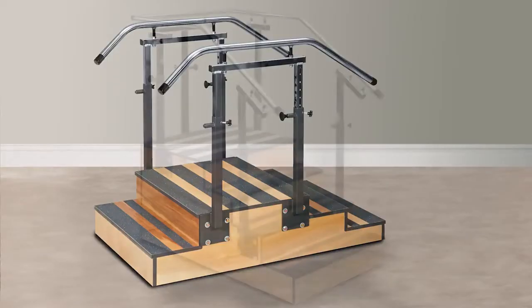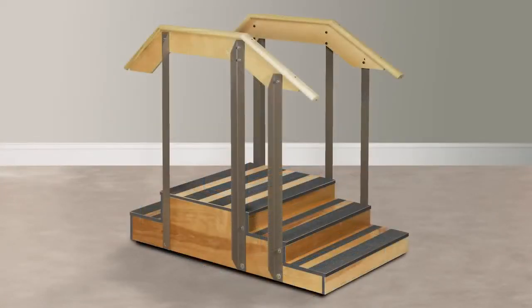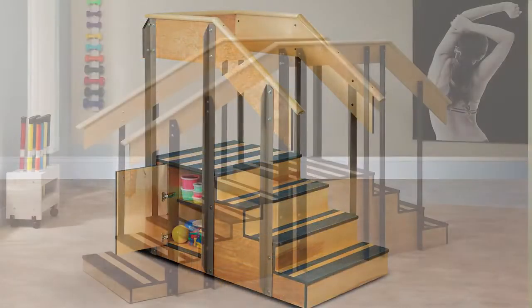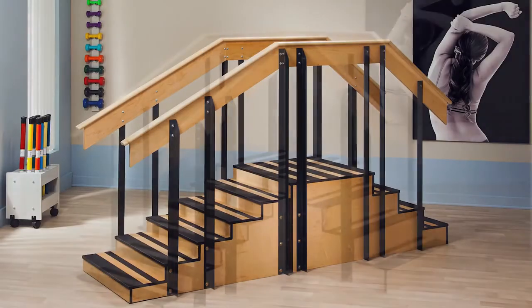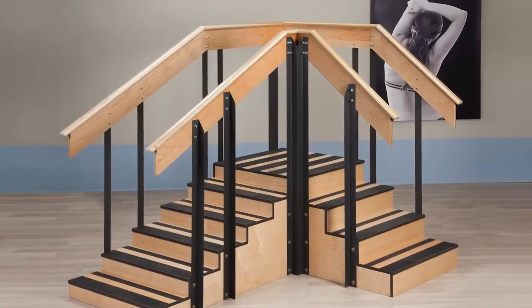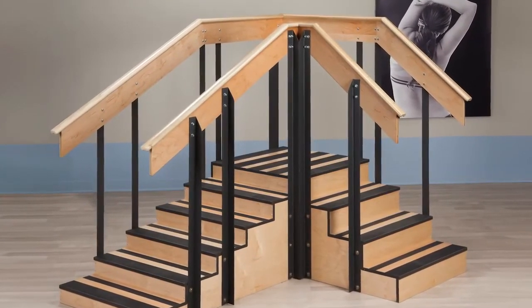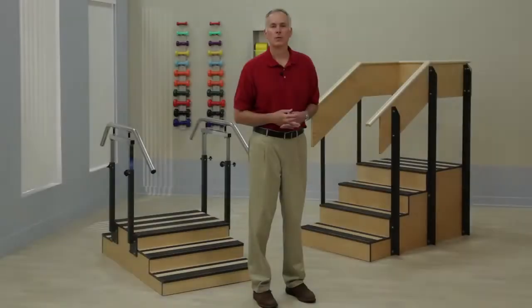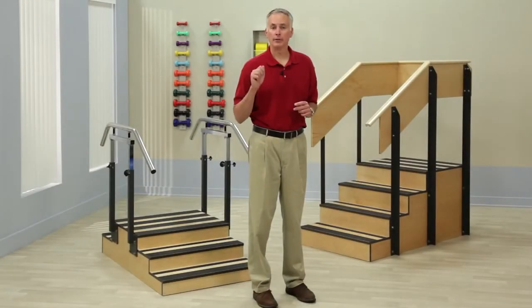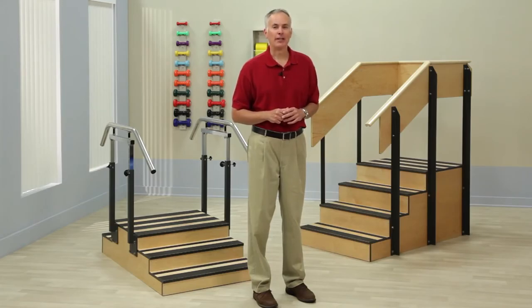Clinton has six models of staircases: two Select series adjustable models and four Classic series models, including one that easily converts from a straight configuration to a corner L arrangement for therapy purposes and to maximize facility space. All Clinton staircases are built tough, built right, and built to be an affordable addition to any physical therapy facility.